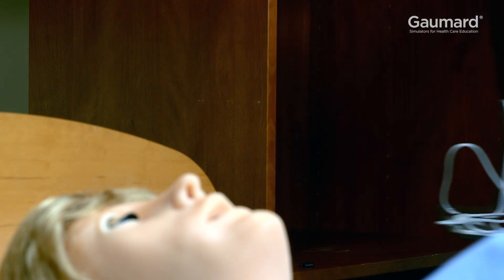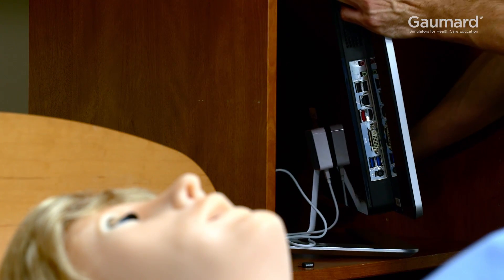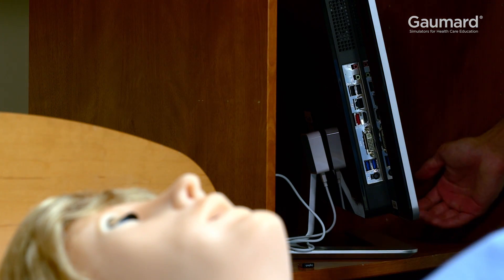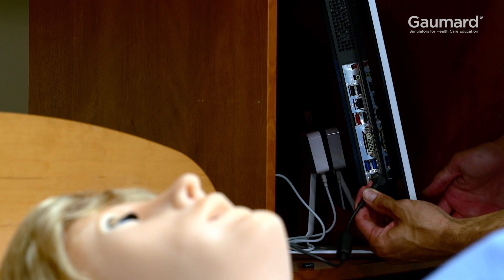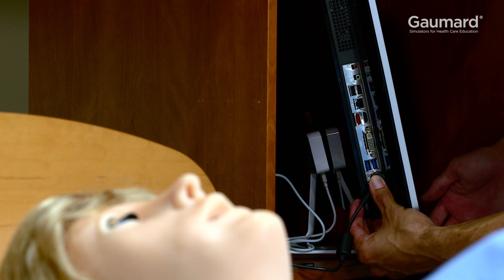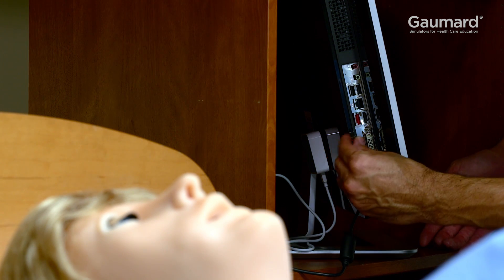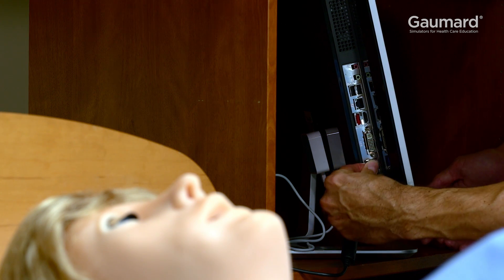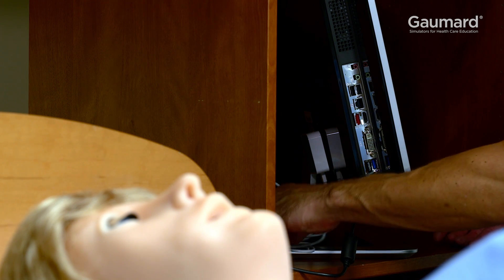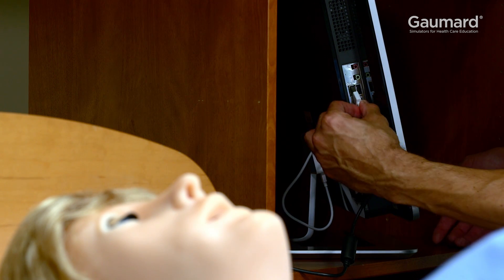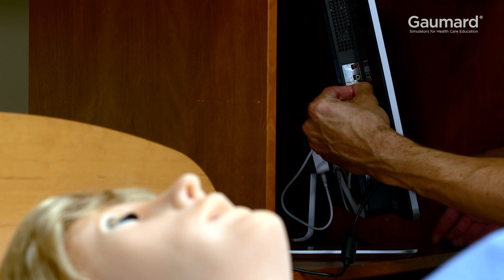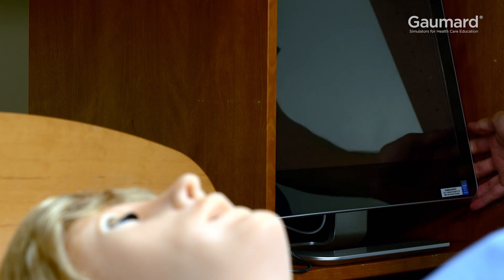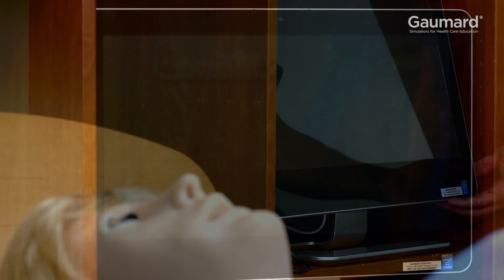Carefully unpack the bedside monitor and place it next to Victoria on a flat, stable surface. Plug the power cable into the port on the bottom of the access panel. Plug the adapter for the wireless keyboard into any of the open USB slots, and lastly, plug in the wireless router into any of the open USB slots. Press the power button and wait for the computer to start.